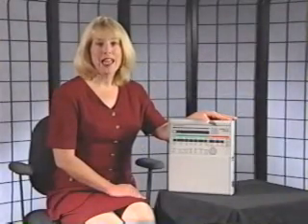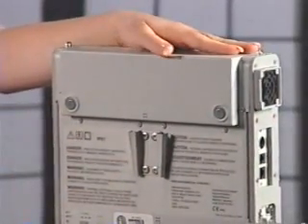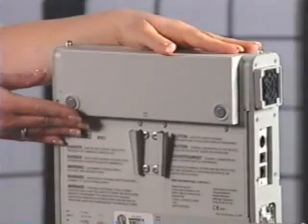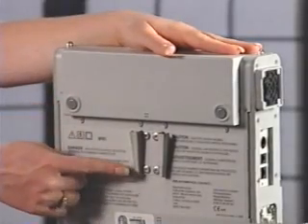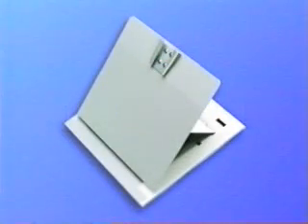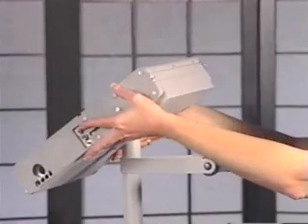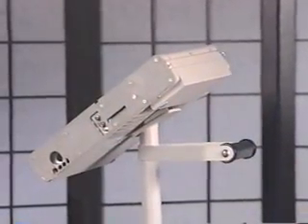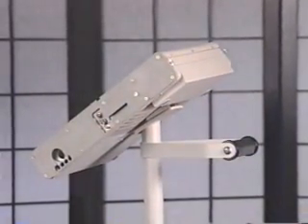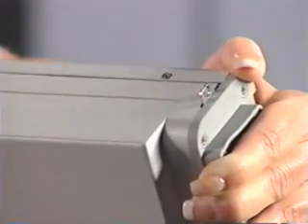Let's take a little tour and look at the features of the LTV 1000. The rear panel provides a compartment where the internal battery is housed. You can also see the mounting bracket. This bracket slides into the corresponding bracket on either the table stand or the pole stand. You can also purchase just the dovetail bracket if you'd like to mount the ventilator on a wall or on the back of a wheelchair. On top, there are two eyelets for attaching either the hand strap or the shoulder strap.